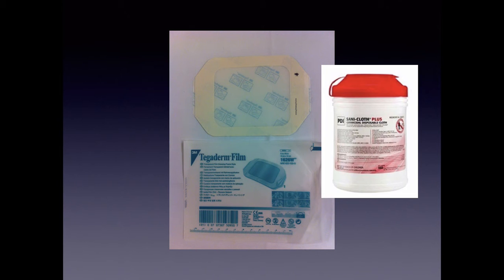We use the red wipes for cleaning all of our ultrasound equipment. The red does not have alcohol. The purple has alcohol in it, and the alcohol dries out the rubber footprint and it can crack. So please use red wipes only on the ultrasound probes. If you can't find any, you can call the stock tech and they'll bring you a bottle that you can keep in the back of the ultrasound machine.